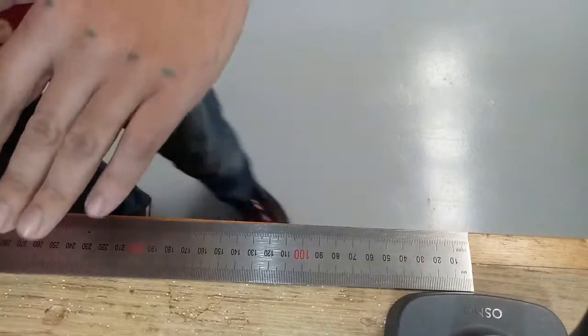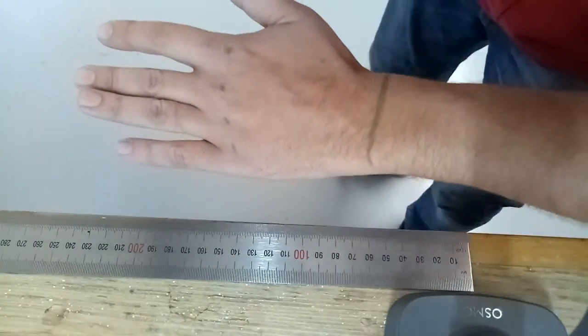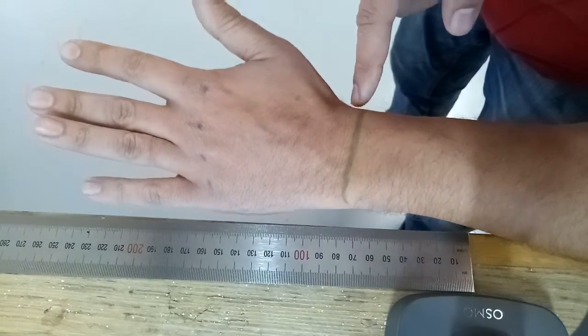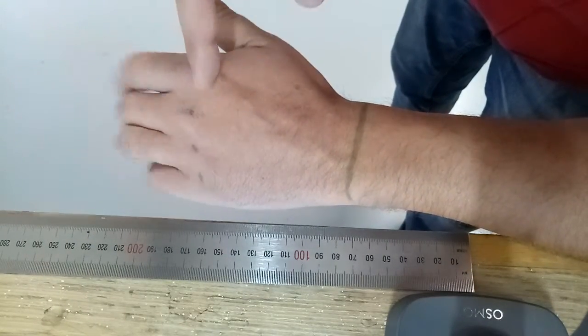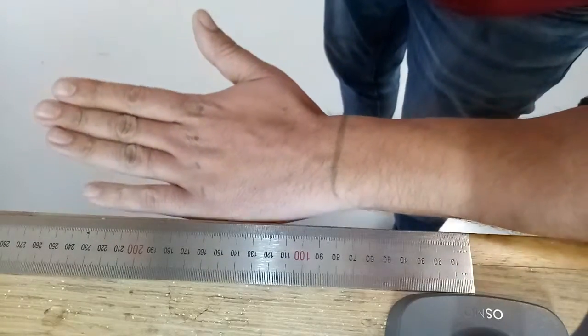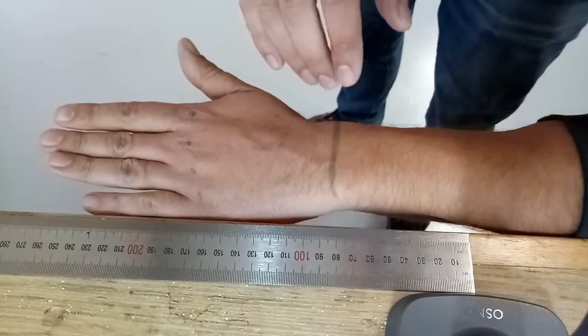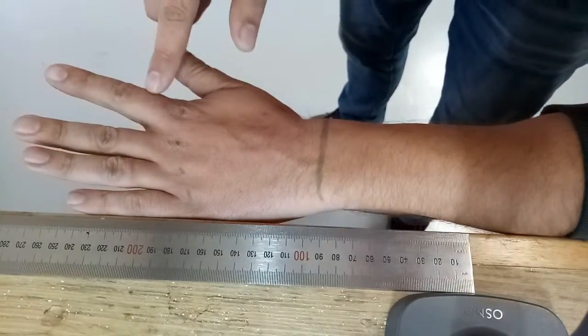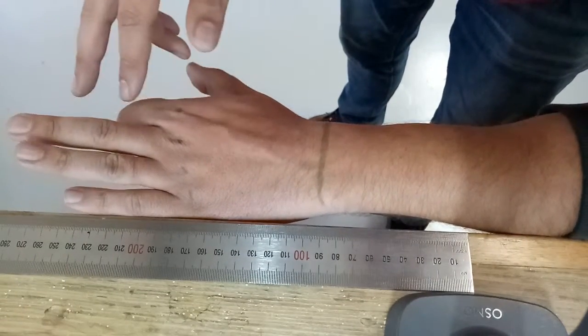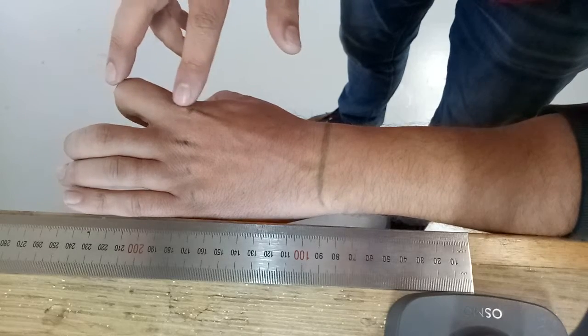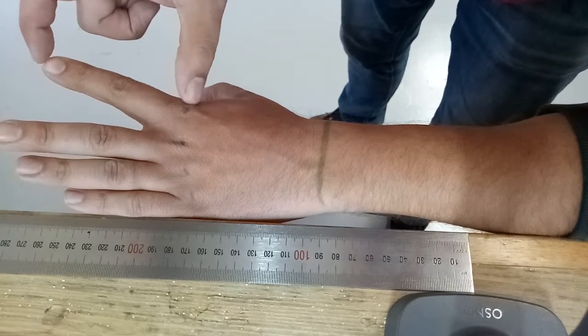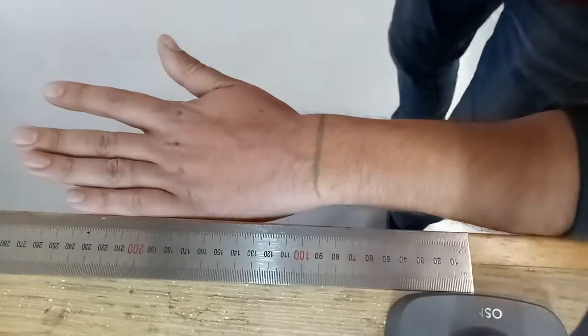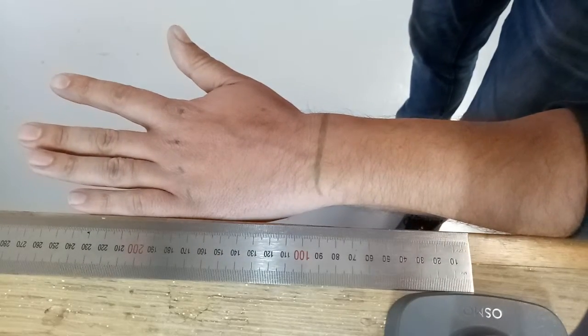The second photo that we require from you is similarly to draw a line on the unaffected hand with dots on each of the knuckles. This is also really important to get level with the table so that we can understand the scale of the affected finger, so we would know that we need to make a finger of this length from the knuckle.